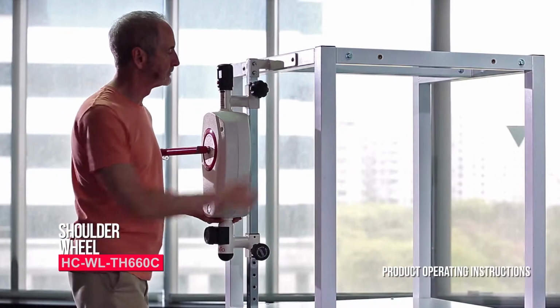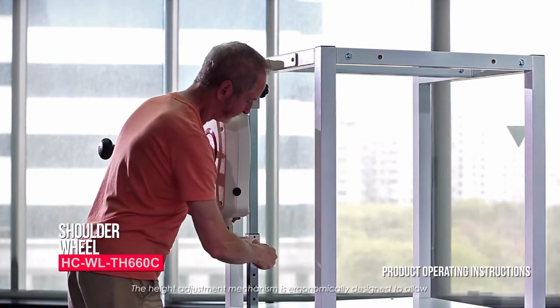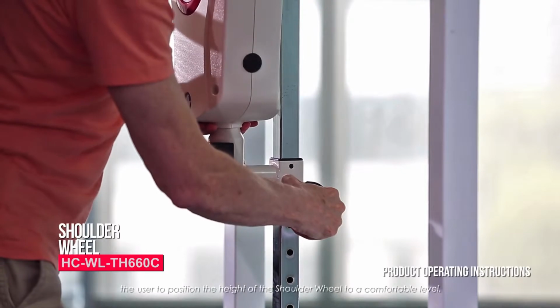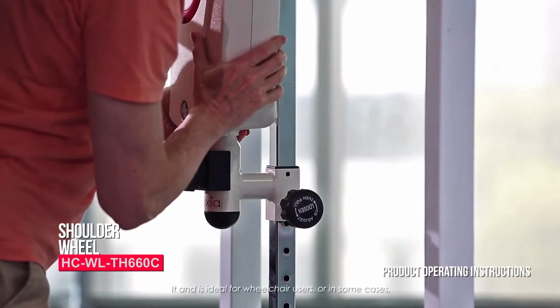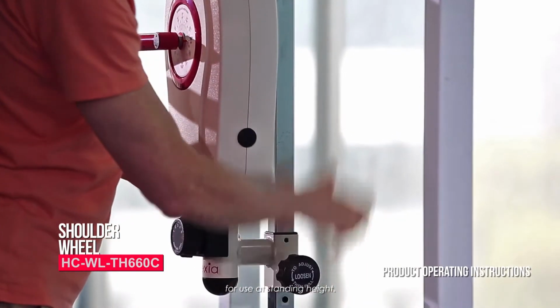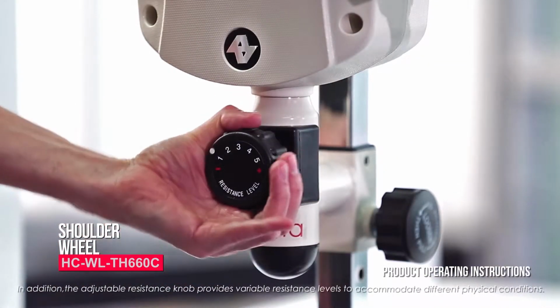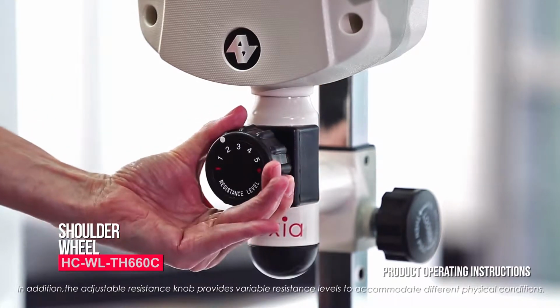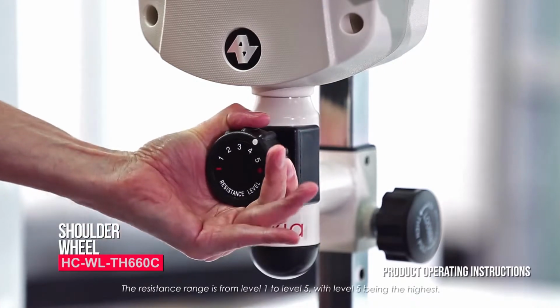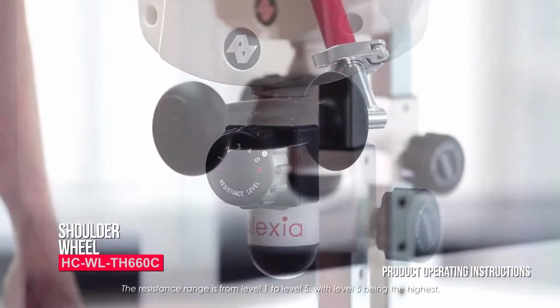Product operating instructions. The height adjustment mechanism is ergonomically designed to allow the user to position the height of the shoulder wheel to a comfortable level. It is ideal for wheelchair users or, in some cases, for use at standing height. In addition, the adjustable resistance knob provides variable resistance levels to accommodate different physical conditions. The resistance range is from level 1 to level 5, with level 5 being the highest.